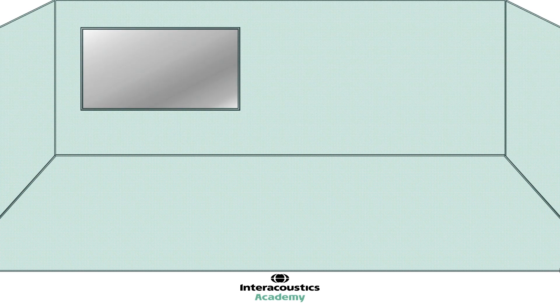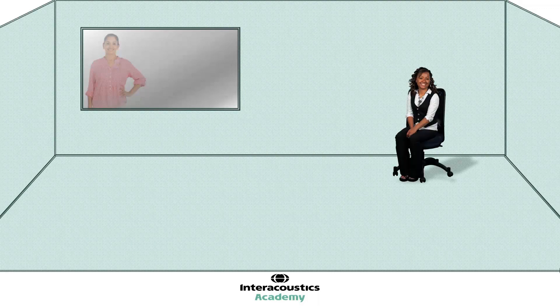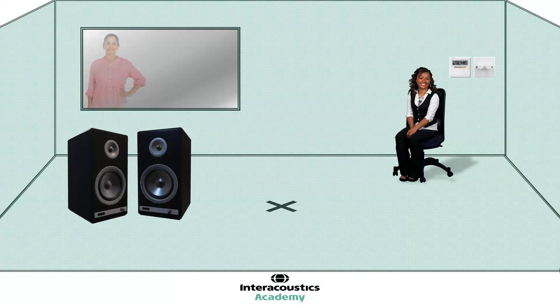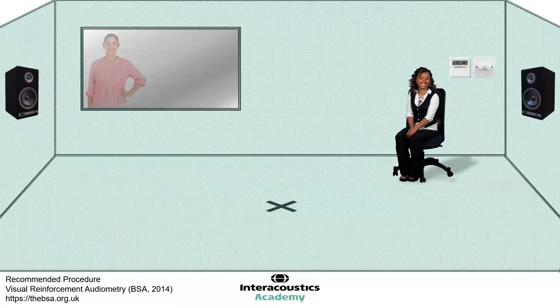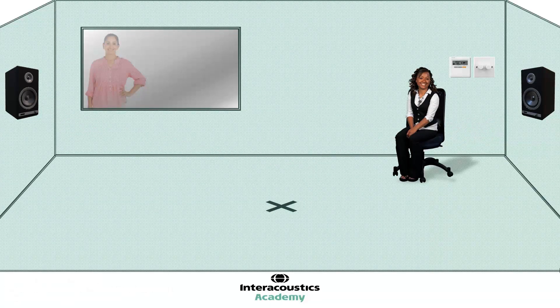Now that we have our room requirements, we can go ahead and furnish the room. We have our big spacious clinic room, with a separate observation room where our first tester will be positioned with the audiometer during testing. Inside the room will be our second tester. We have dimmable lighting and air conditioning controls. It is strongly advisable to place a mark in the middle of the room where you want the patient to be sitting for testing — this should be where the sound field system has been calibrated to. Our sound field speakers should be positioned one metre's distance from the patient, at 90 degrees azimuth. It is important to avoid any reflective surfaces near or around the speakers.